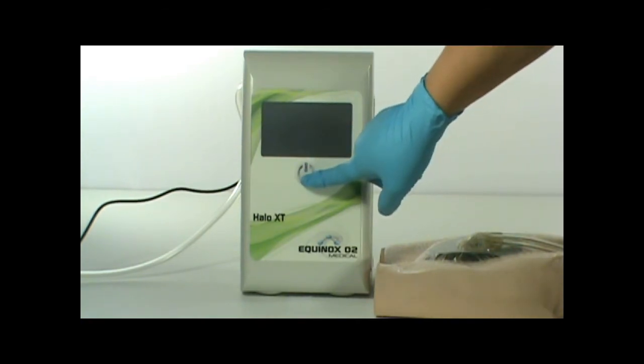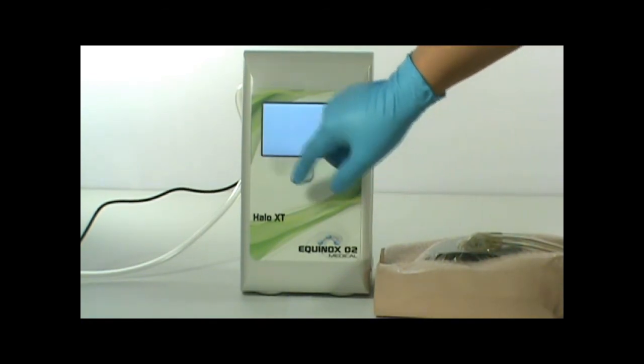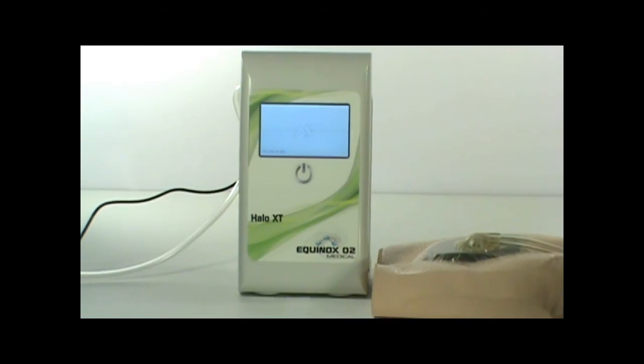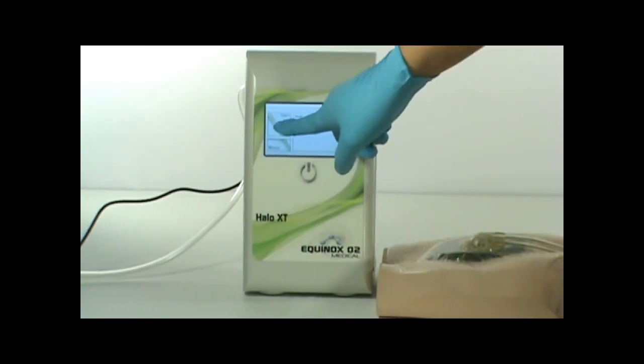Press the power button until the pump turns on. Press start to start therapy.